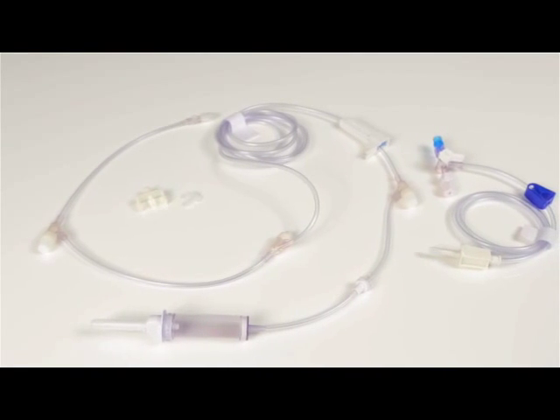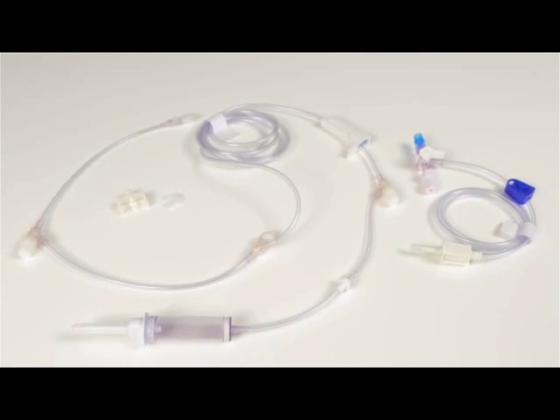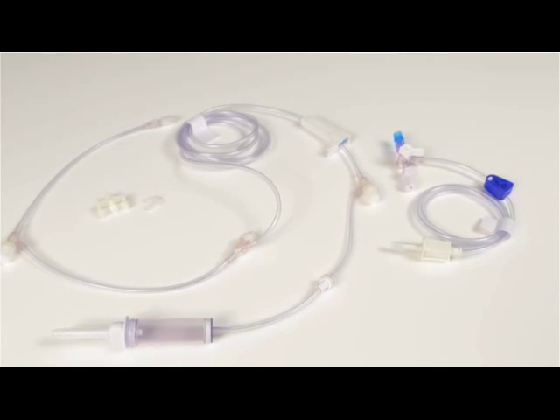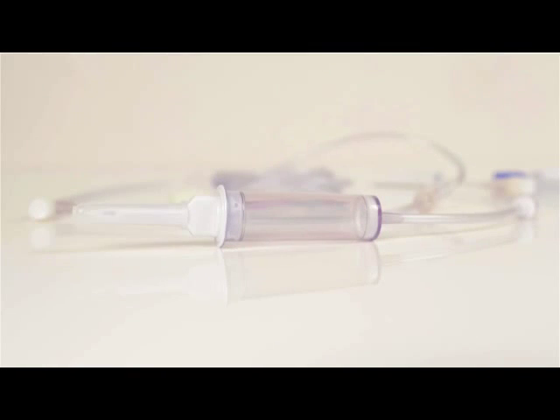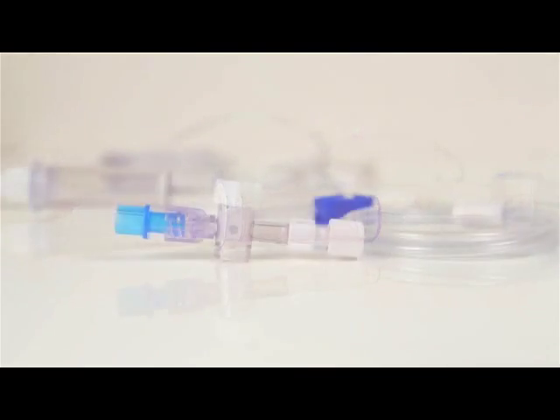MediXL also has a range of medical devices ranging from simple products such as vial adapters to more complex products such as sets and kits for different indications and even electronic infusion devices.